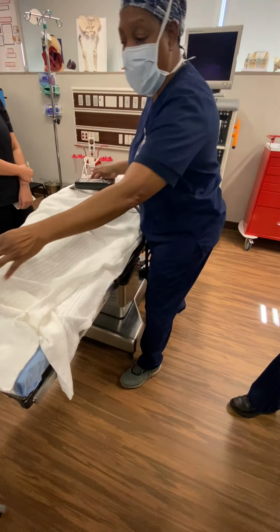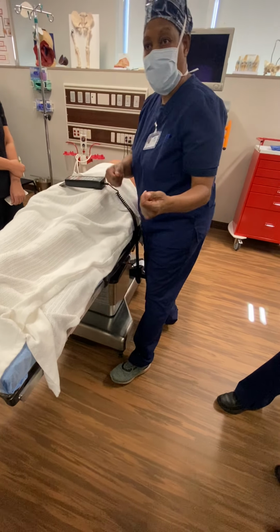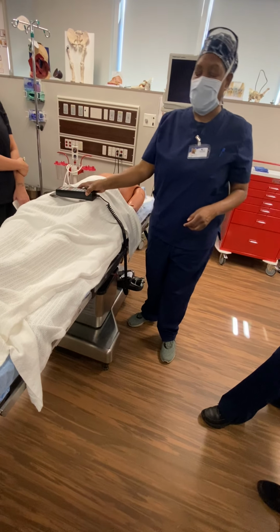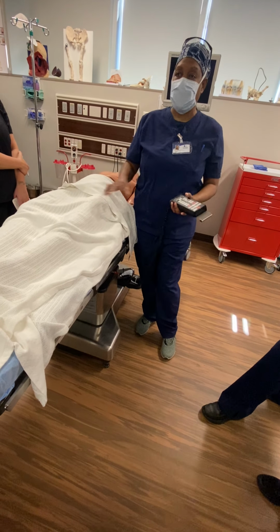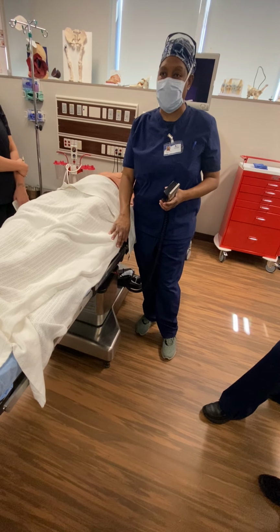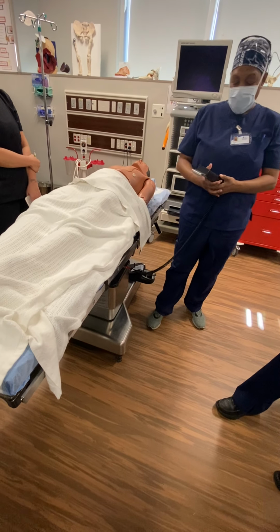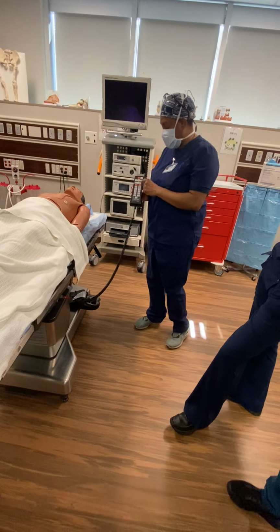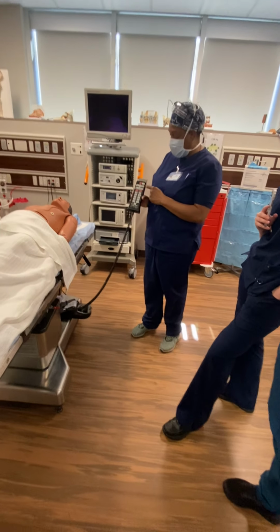You may be at the feet, holding them, moving them over, or whatever, okay? So at that time, yeah, you can touch the bed or whatever, okay? That's a good question though. So this is on, so the bed is locked, so if I wanna unlock the bed, okay?